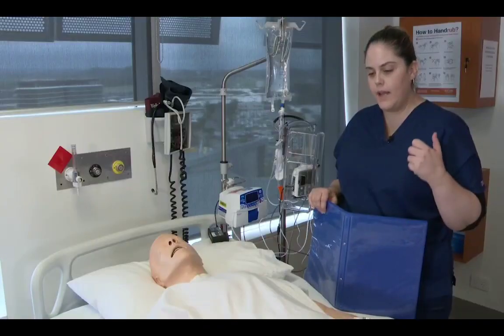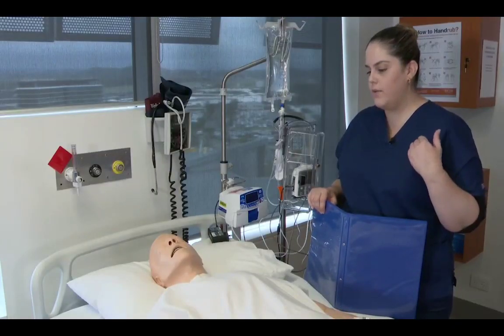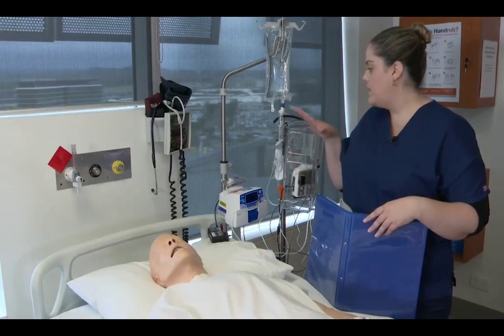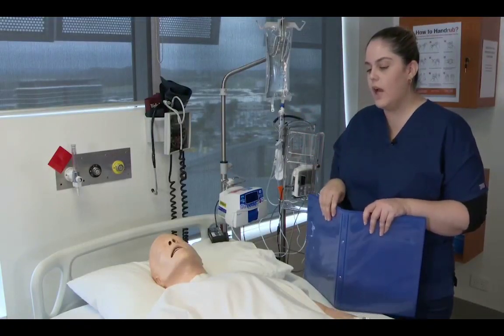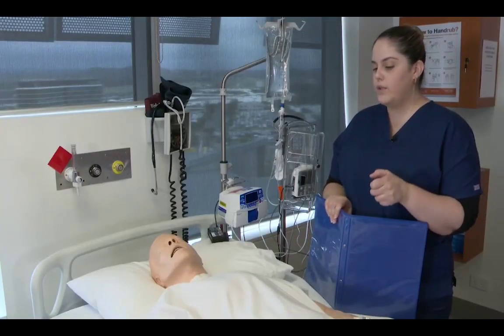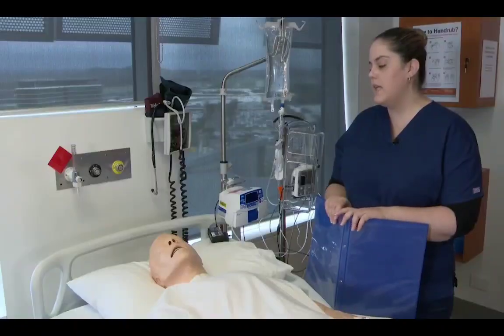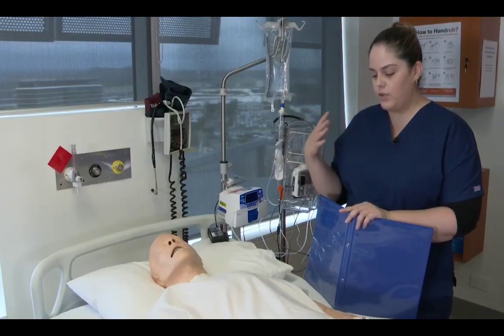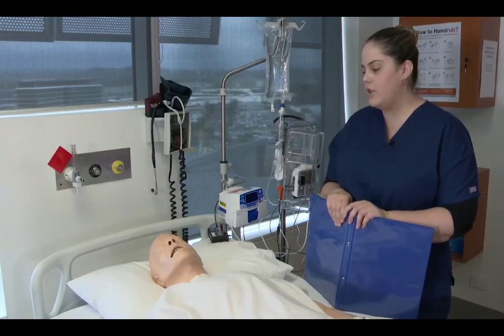We give you a button and you just push the button each time you feel that you need to have some pain relief administered. We make sure that we set the pump up in such a way that you can't overdose, so we have what's known as a lockout window. So once you've pushed the button, nothing will be administered again for another 5 minutes. And that makes sure that we're not giving you too much of this medication.